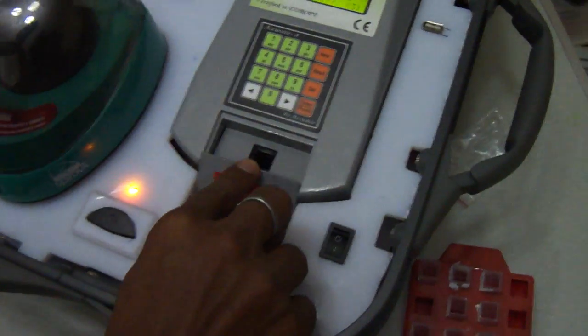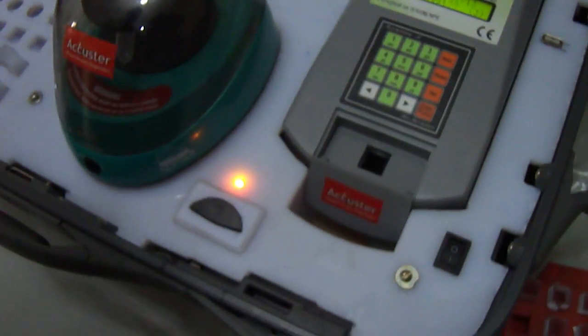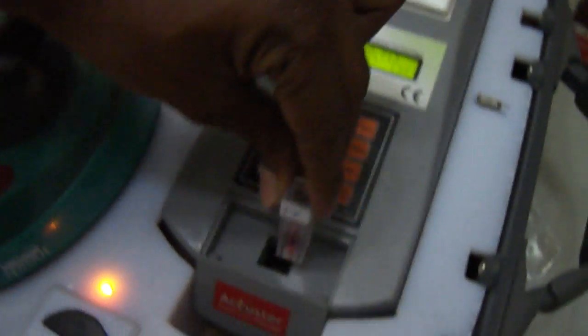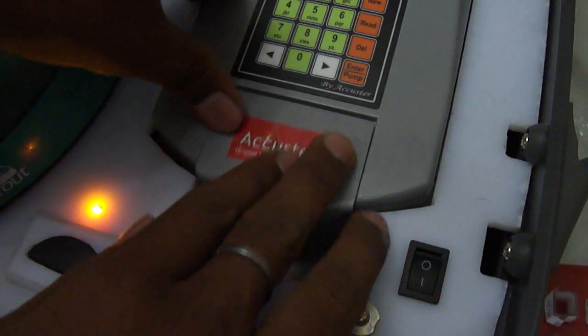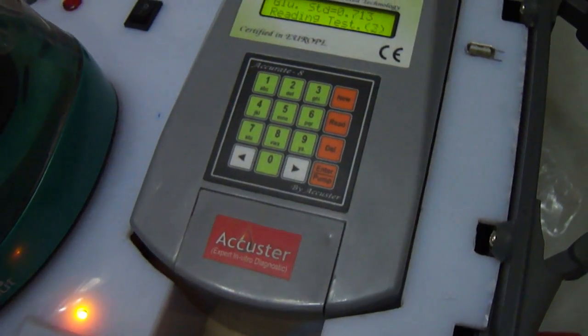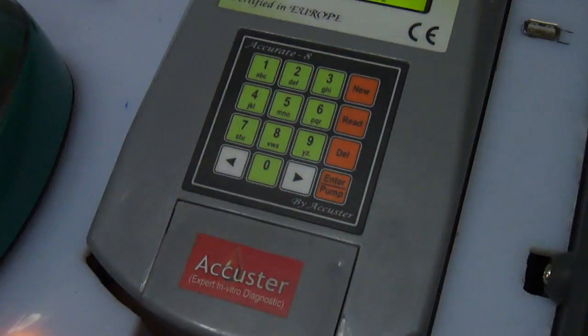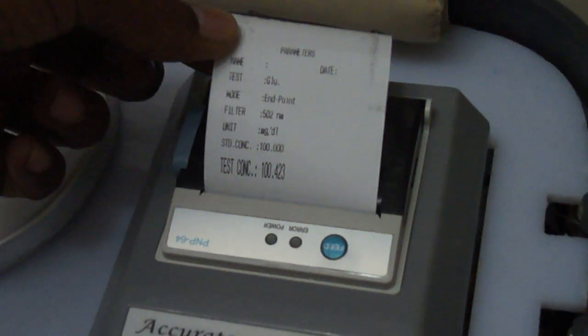Here we will open the cover of the device, and then I will put the sample of glucose which I have already prepared. Now I put the sample here, and after that I will close it and press enter. It will take only 3 seconds to give you the result. Now this will be your concentration of the test. Here you can press enter and get the result.